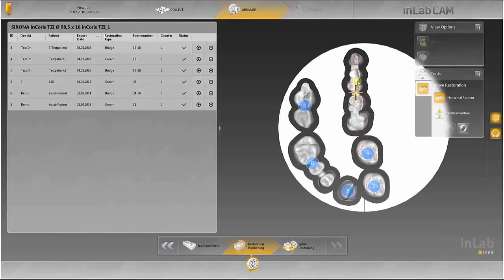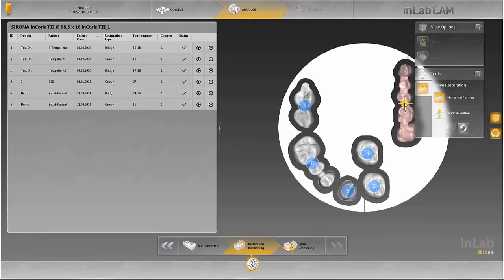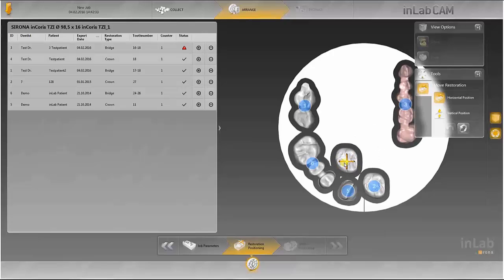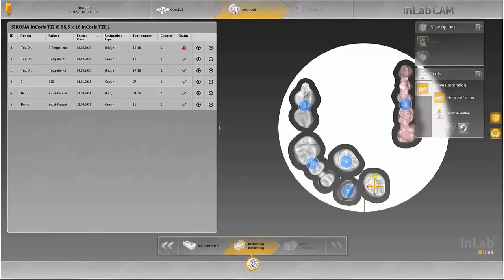As you can see, work from the InLab software can be easily combined with work originally imported from third-party software.